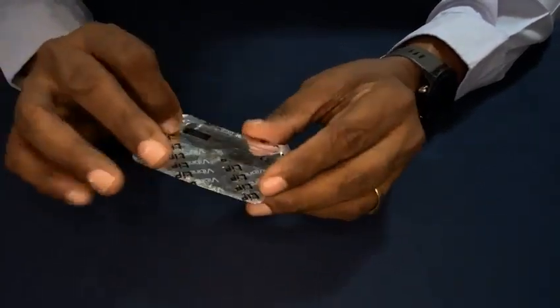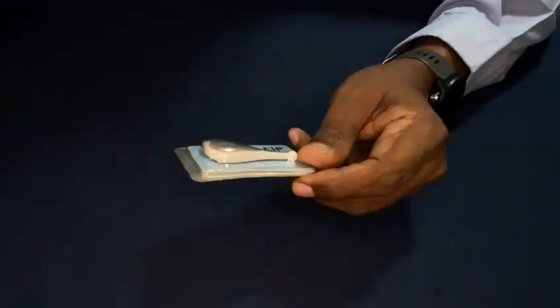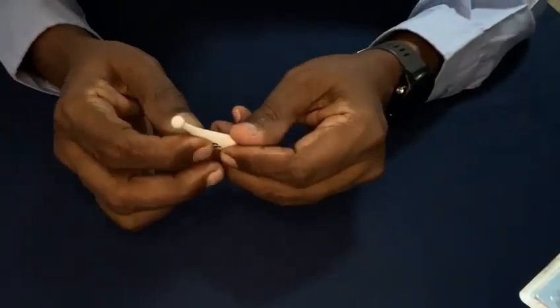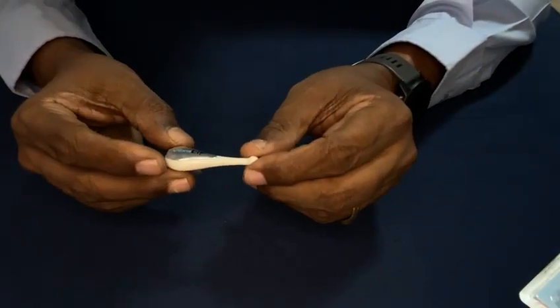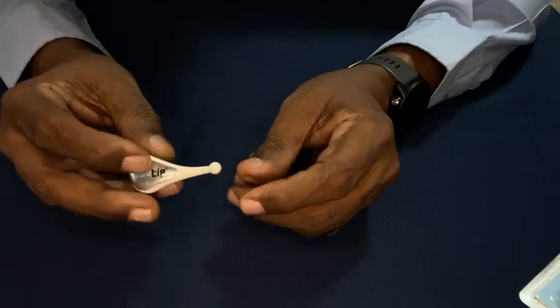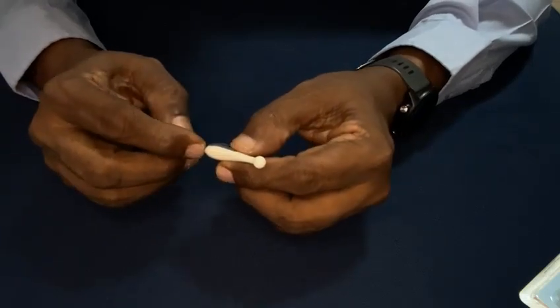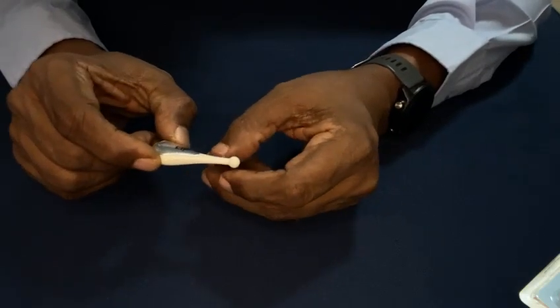This comes in this blister pack. Once you take it out, you will be having this model. You can see, very small, it is measuring only 2 inches by less than 1 inch.